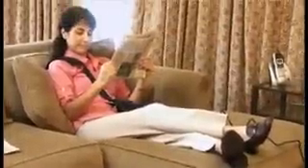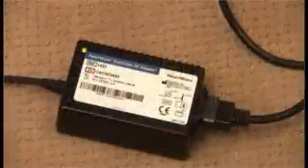While active, a patient will typically use two batteries. While relaxing or sleeping, the patient would typically use the AC adapter, because it provides power from an electrical outlet for an unlimited period of time. The DC adapter draws power from the electrical outlet in an automobile, and may be used when traveling by car.